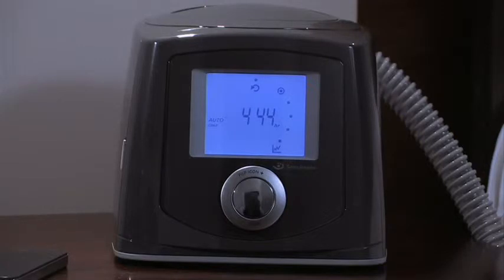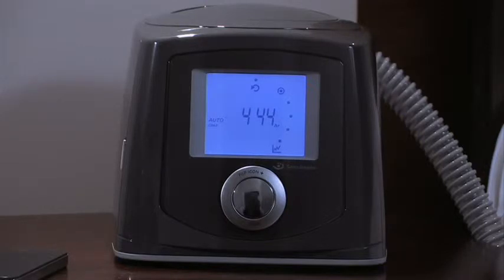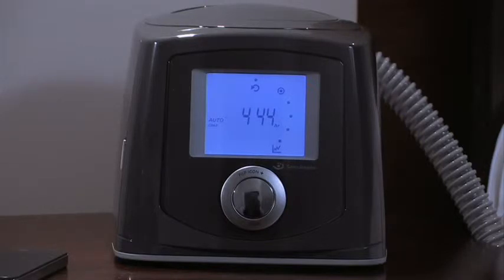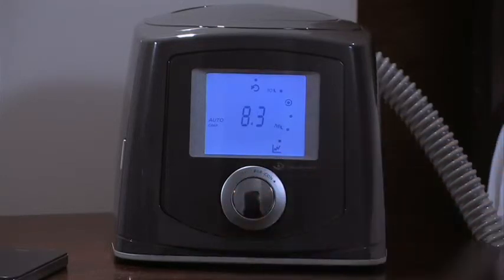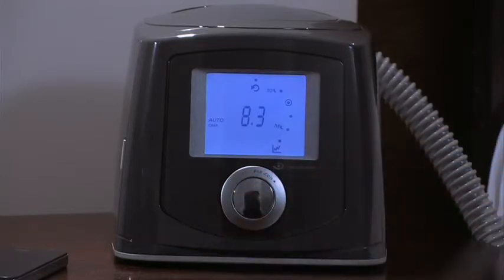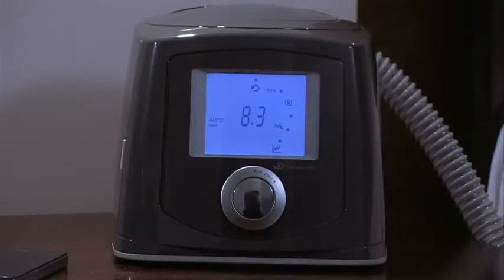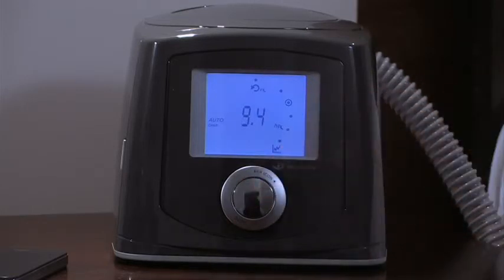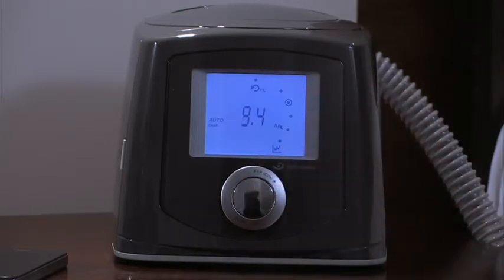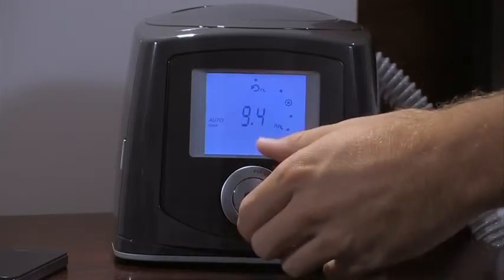This figure shows the total number of compliant hours since therapy commenced, and the average compliant hours achieved during the last 30 nights. Press the smart dial again to access the average for the last 7 nights.